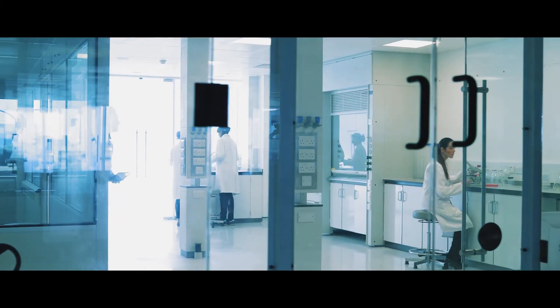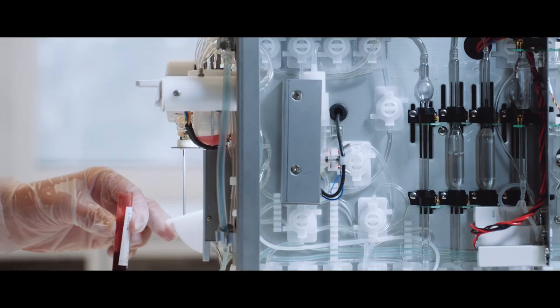Made possible by our own R&D department and in-house production of both instruments and consumables.